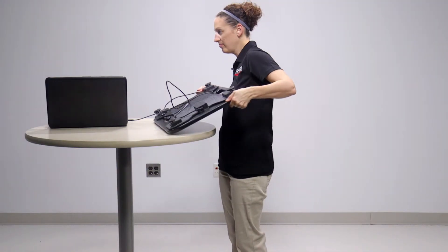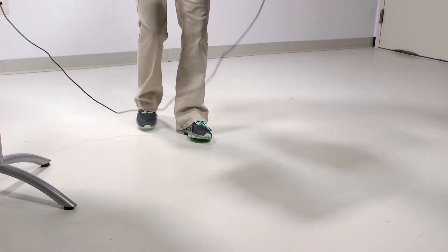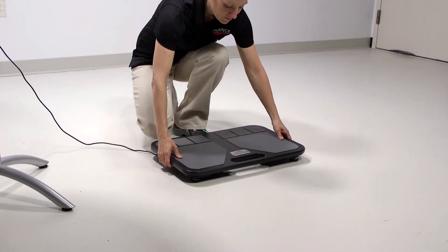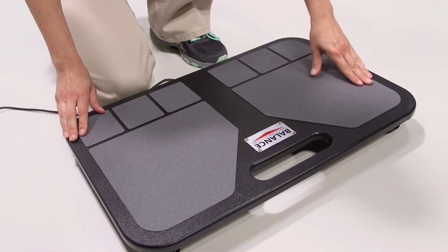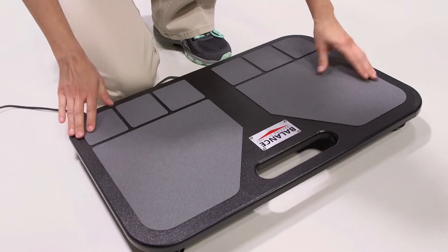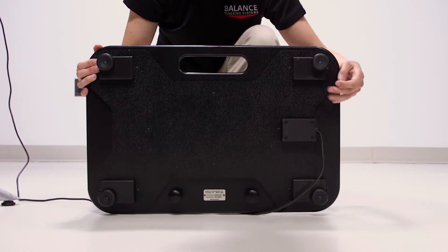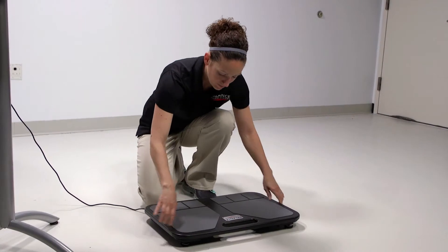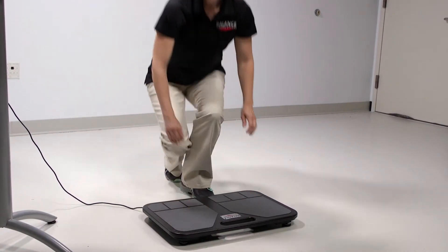Place the B-Trax Balance Plate on the ground. Push on the top of the plate to ensure all four legs are in contact with the floor. If the plate is unsteady, adjust the height of the legs by turning them in or out, then test the plate again.